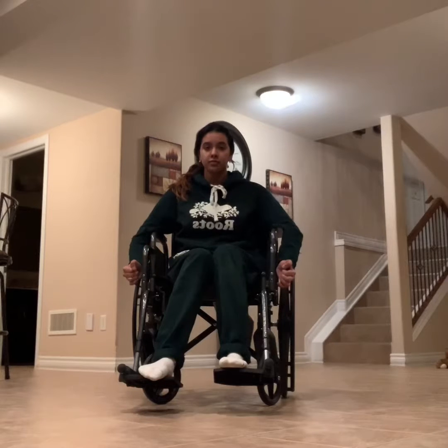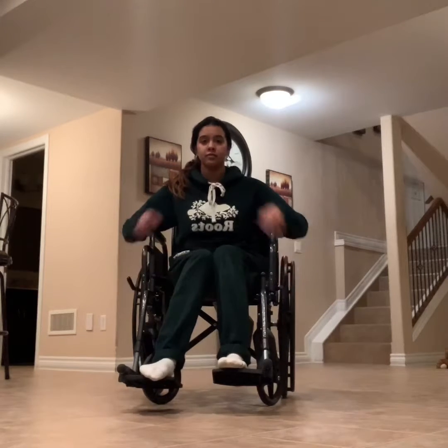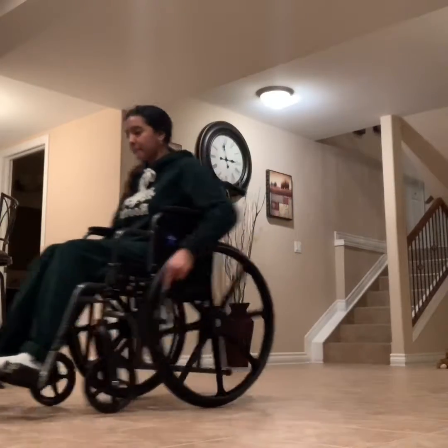Next, in order to become mobile with the wheelchair, unlock the brakes like it was previously demonstrated. When they are unlocked, place your hands onto the outside bars of the wheels and avoid grabbing the tire to prevent getting pinched or caught in the wheel.